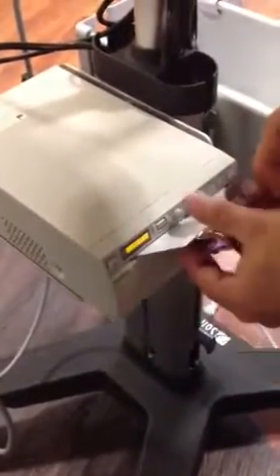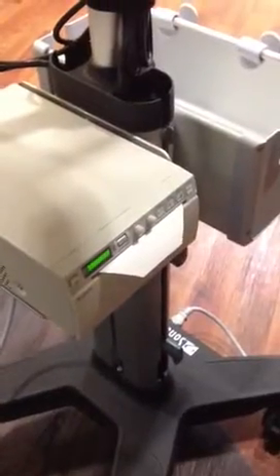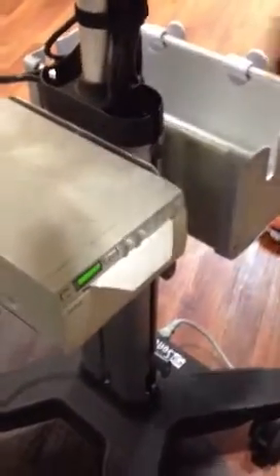And the paper, you do not have to thread it. You just hit the open button, drop it in, close it, and that's it. You don't have to thread it whatsoever. If you want to print something, this A button has a little printer icon there. Just hit A, and it will print it for you.